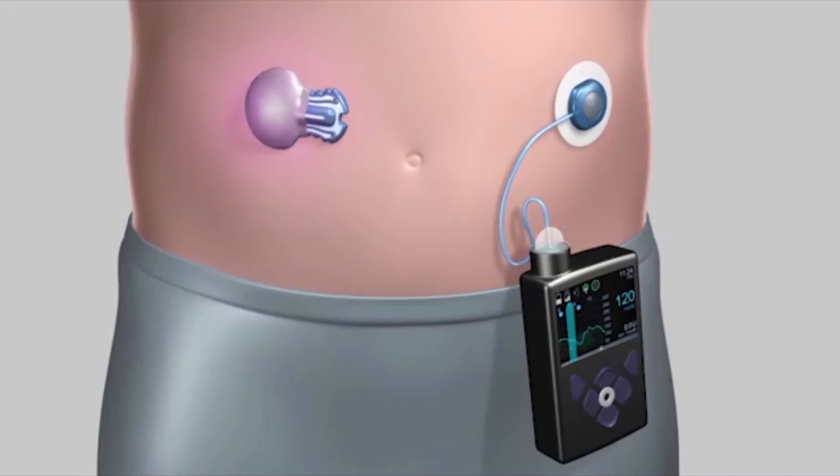Based on the instructions sent by the controller, an infusion pump adjusts the insulin delivery to the tissue via a cannula inserted under the skin.